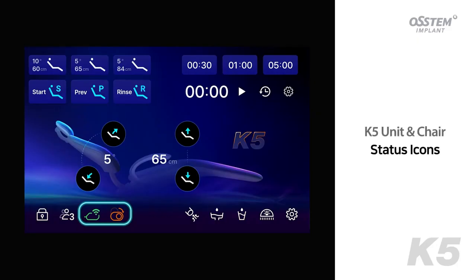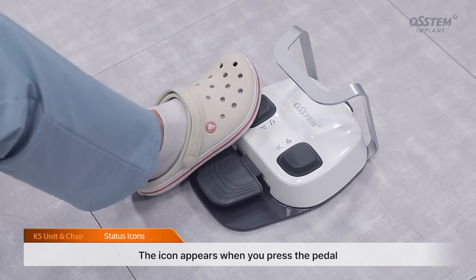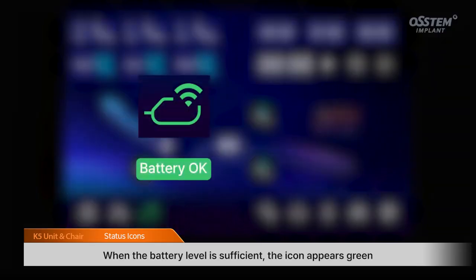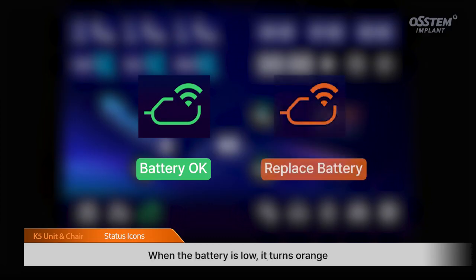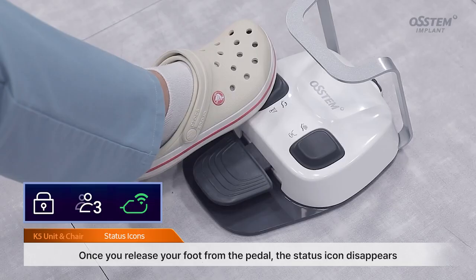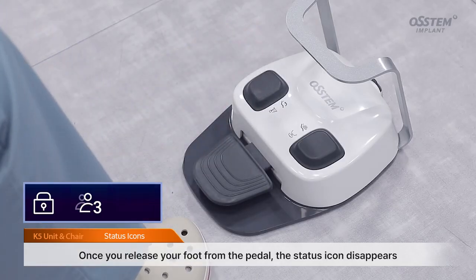Status icons. This is the wireless foot controller status icon. The icon appears when you press the pedal and a signal is being transmitted or received. When the battery level is sufficient, the icon appears green. When the battery is low, it turns orange. If the orange icon appears, the battery should be replaced immediately. Once you release your foot from the pedal, the status icon disappears.